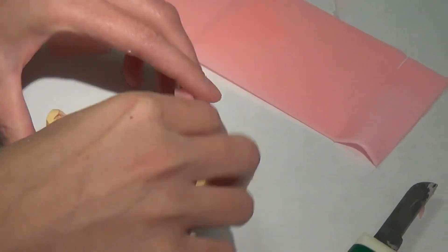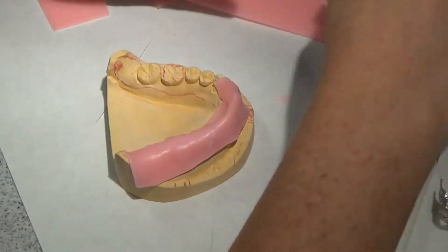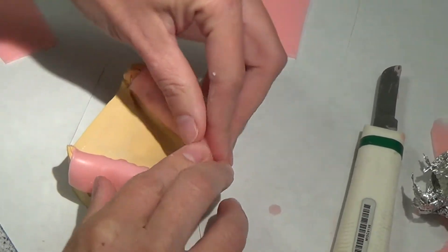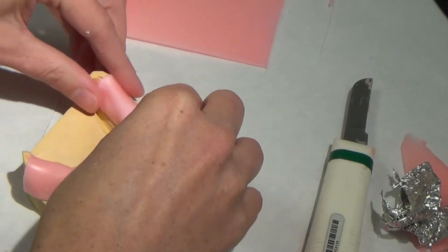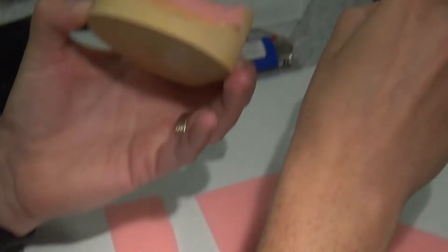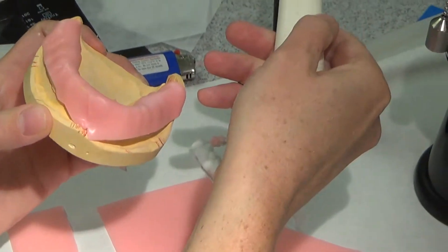I'm going to place it over the teeth. Now you don't need to cut your stops until after we have all the wax that we're going to use on the cast, otherwise you're just going to cut it twice. So again, I just want this over the teeth.